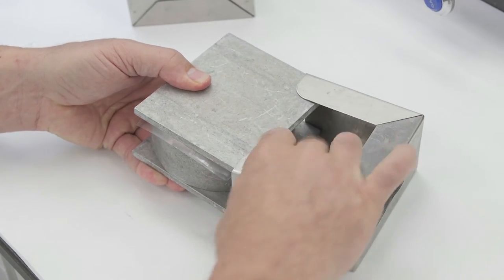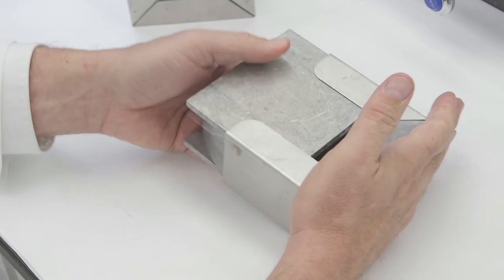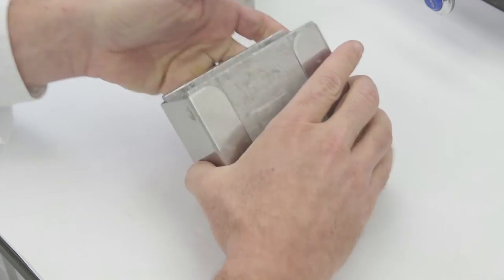Finally, reassemble the flask. Be especially careful to avoid possible tooth and or cast movement.